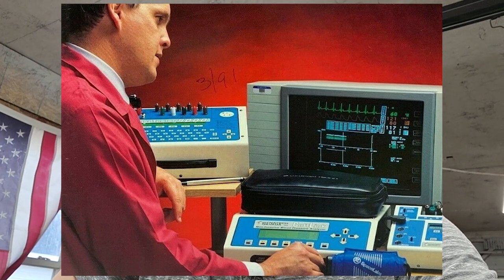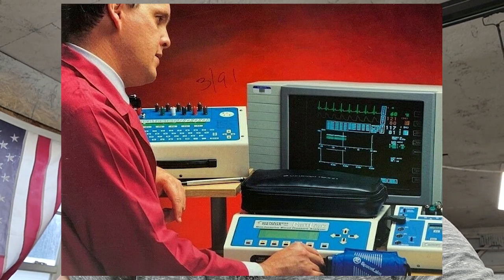I think Fluke bought them out, but D&I made invincible products — they were incredibly good. Here I've got a 232D electrical safety analyzer, and it also has an ECG simulator analyzer. Very cool, nice piece of kit, and this one I bought for around $200.